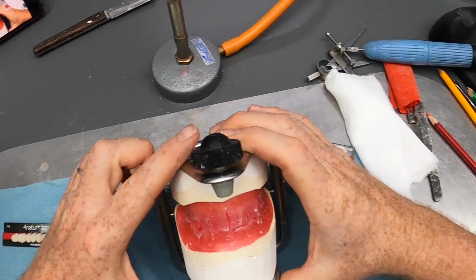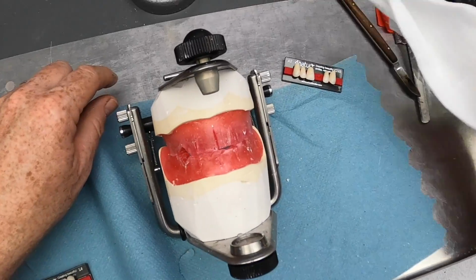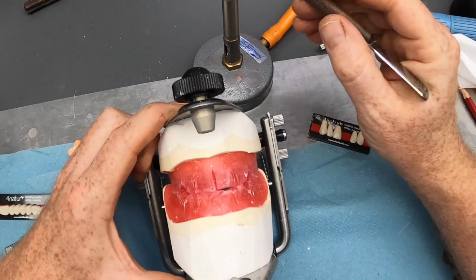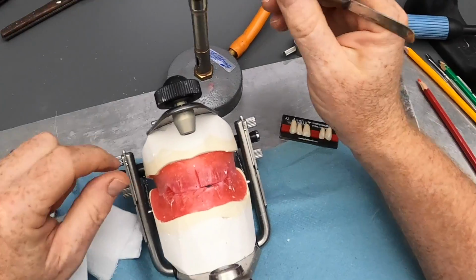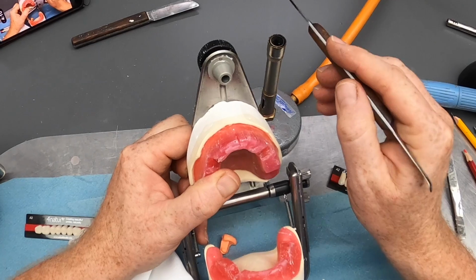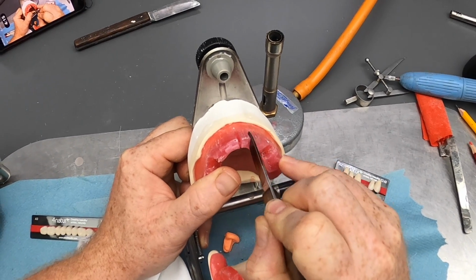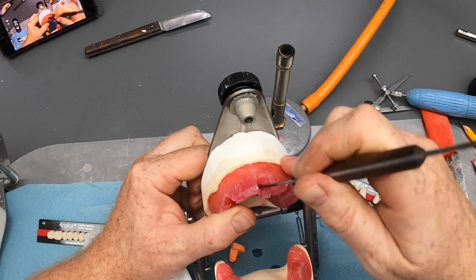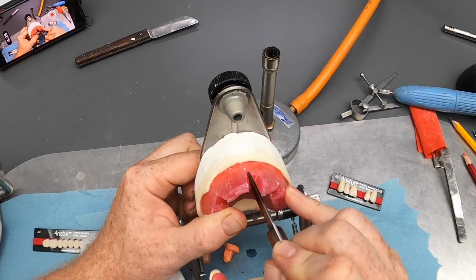We'll come to that a little later, but for this first tooth, if I can find my knife, take a hot knife, and then we can just give it a wipe to make sure there's no horrible bits on it, and then we can start by taking a section of the wax out and putting the tooth in that place. So cutting down the midline, cutting a chunk out the size of the anterior tooth, taking that out, and then we can soften the wax underneath.